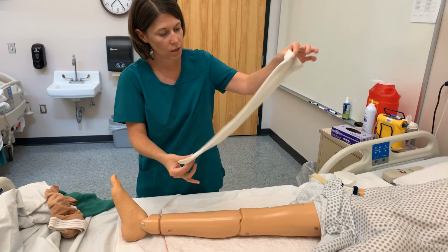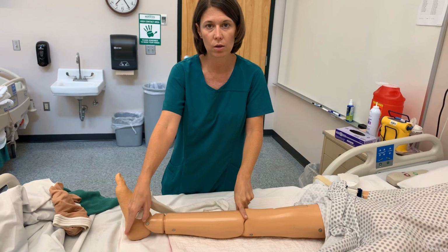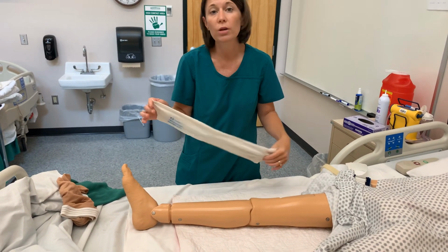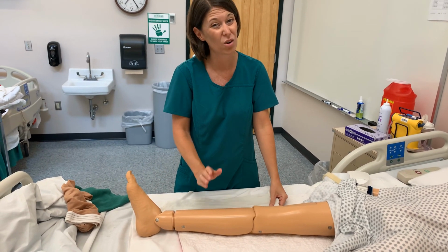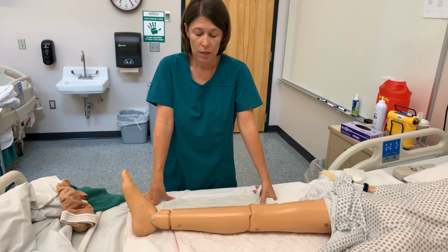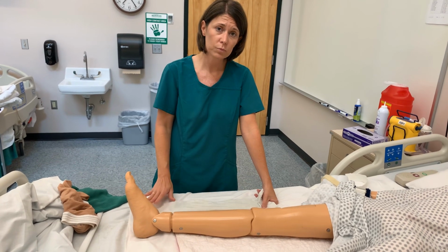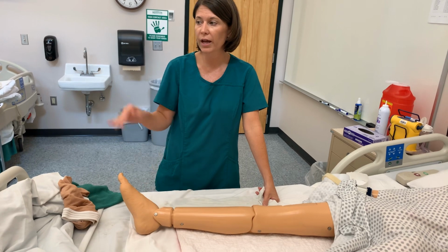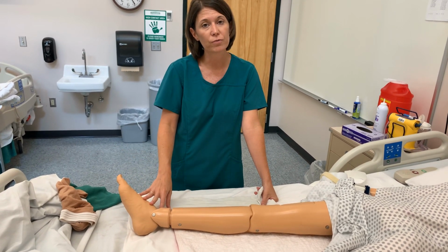With the knee high, you see measurement from the knee to the heel, circumference of the calf. Okay, these are not intended to be loose on your client. They actually fit really snug, okay? And they can be a challenge to get on your client. So the client needs to be lying down with their feet like this. Or if they are in a chair, at least have them prop their feet up for at least 15 minutes, okay?